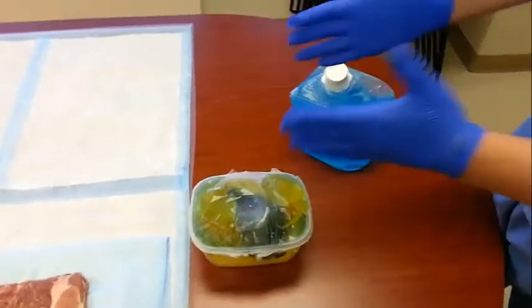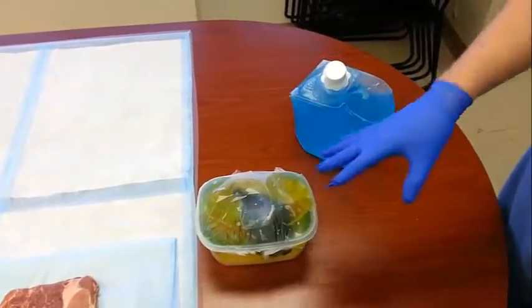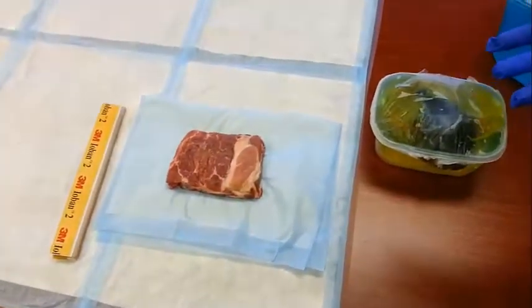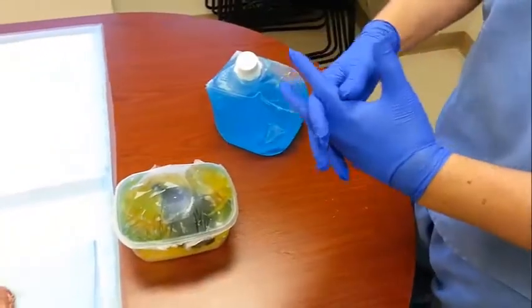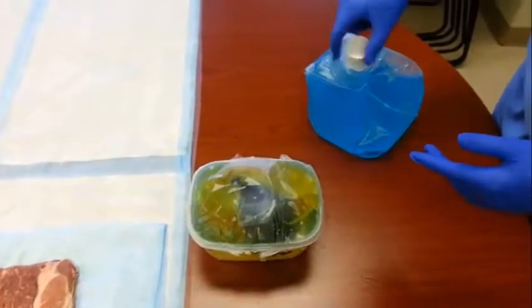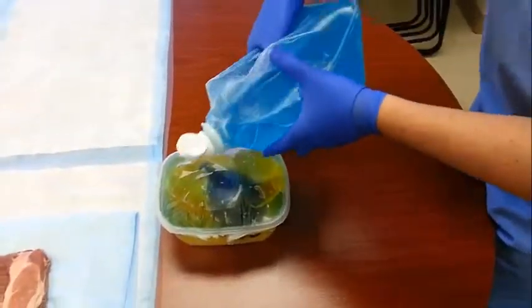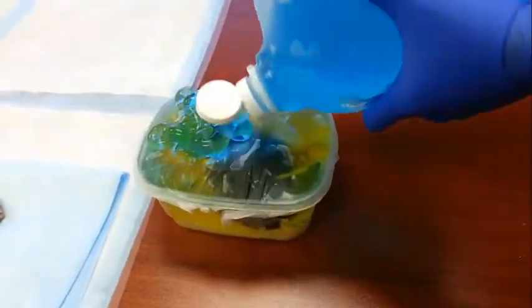Here's an alternative step. The model can be used as-is, or for advanced realism, you can use some ribs. For this iteration, I recommend double-gloving so you can switch hands. If you're going to use the ribs, put a layer of gel underneath them — this is why the double gloves are important. A layer of gel to fill in any air.